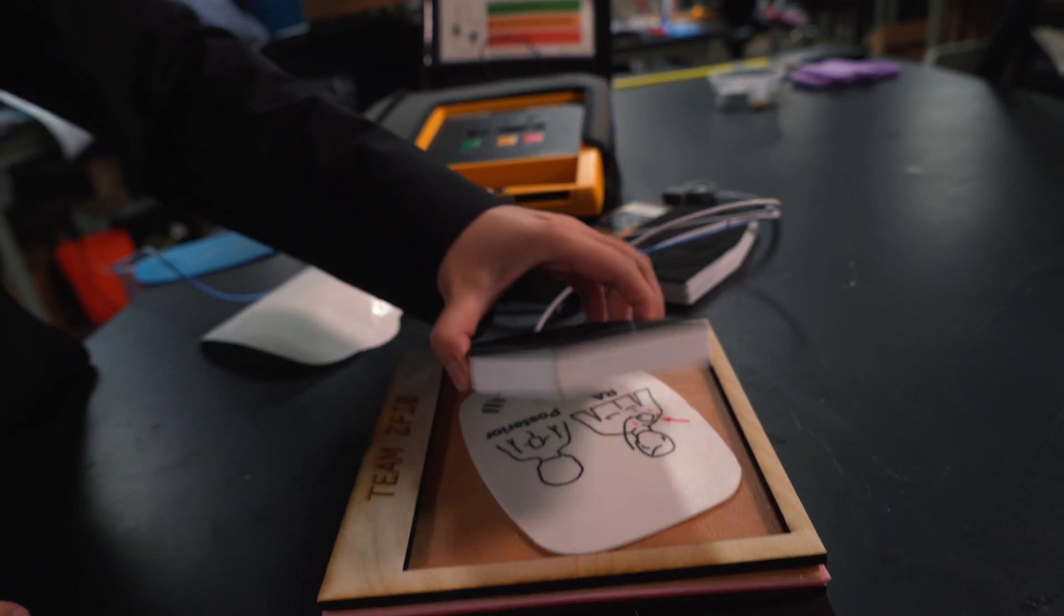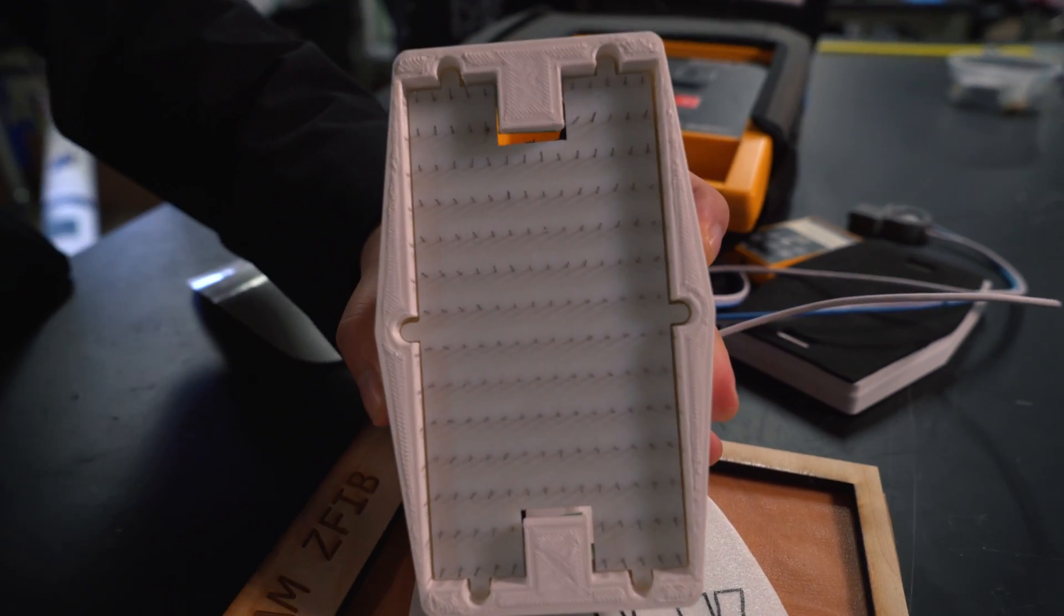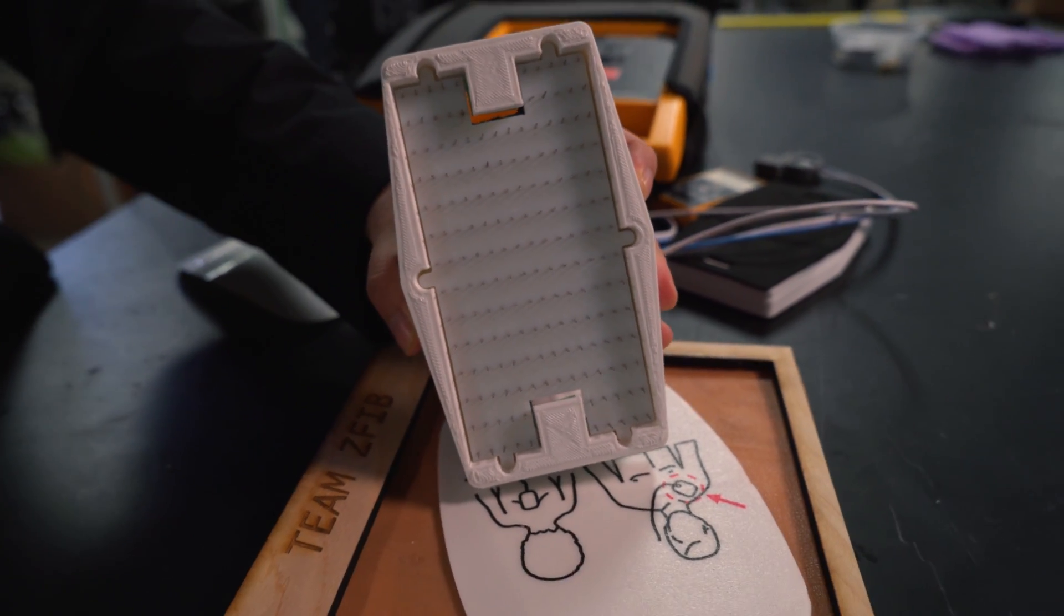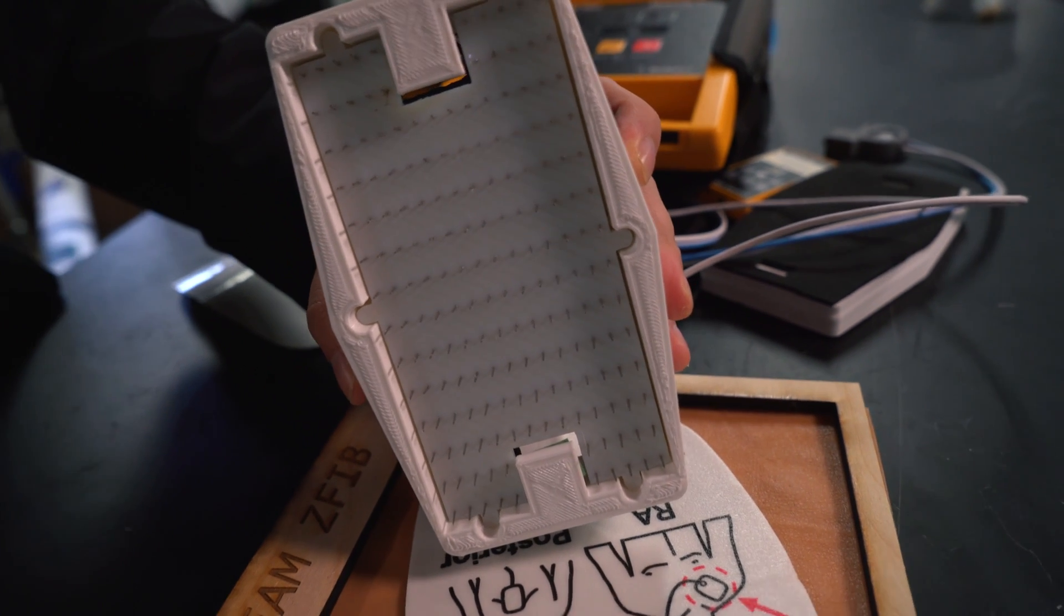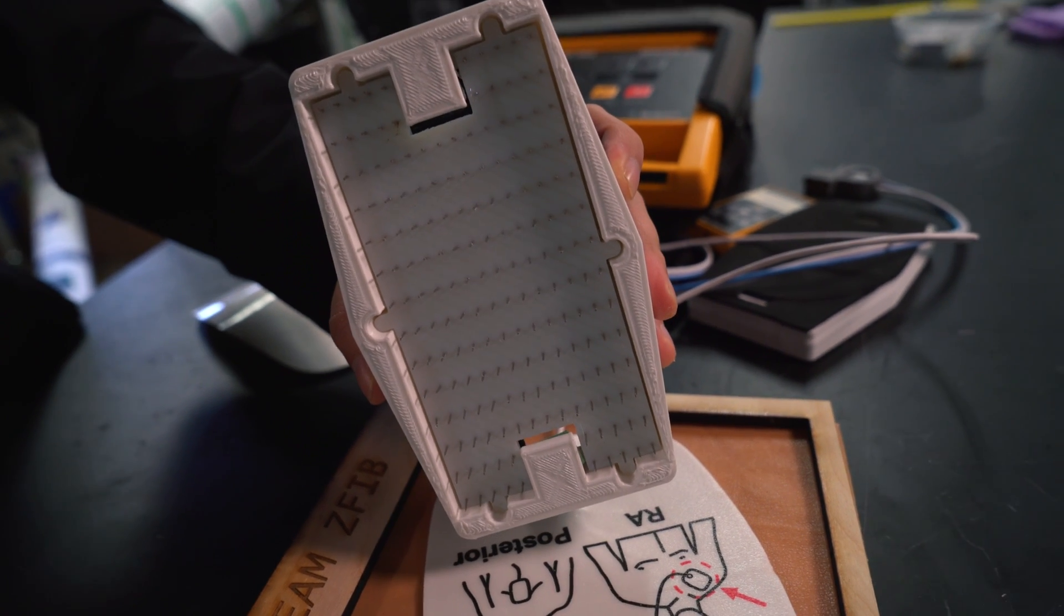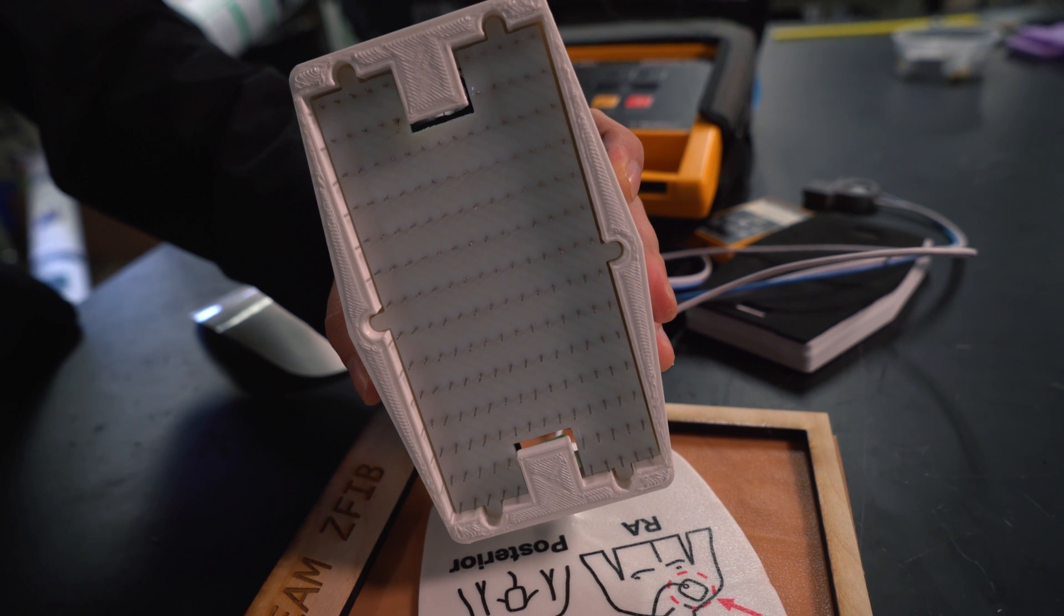The key is the skin. From literature, we know that the first two millimeters, which is the stratum corneum epidermis of the skin, has really high impedance. Our goal is to use this needle array to penetrate this barrier so that the impedance of our chest lowers.